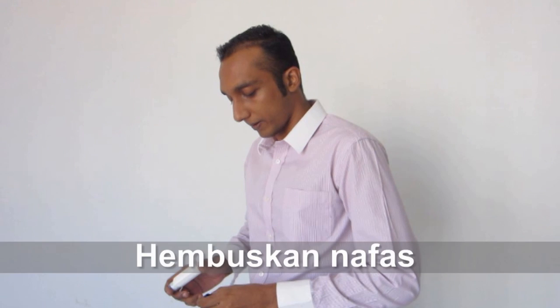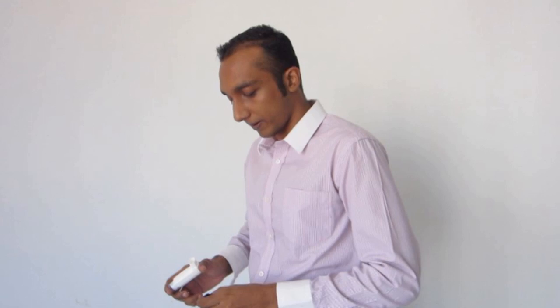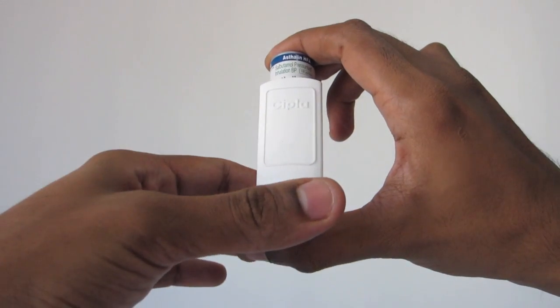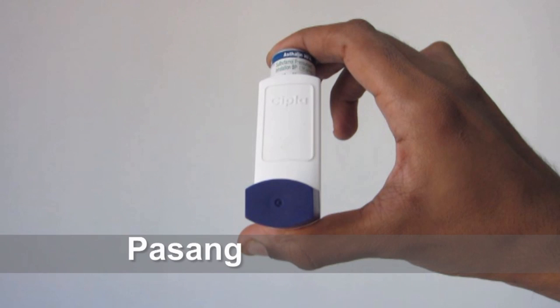Hembus keluar nafas dengan perlahan. Pasangkan semula penutup. Ulang semula langkah-langkah tersebut jika perlu semburan kedua.